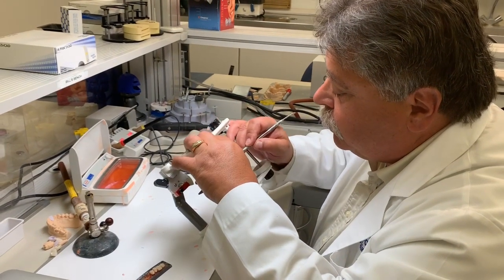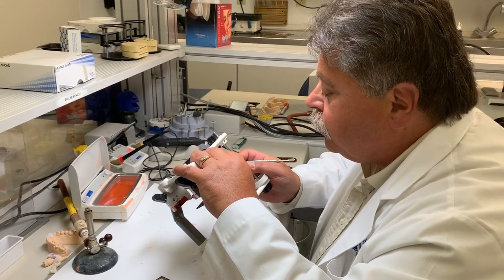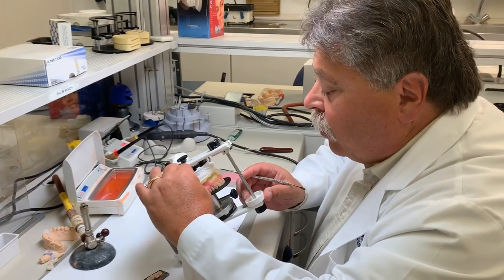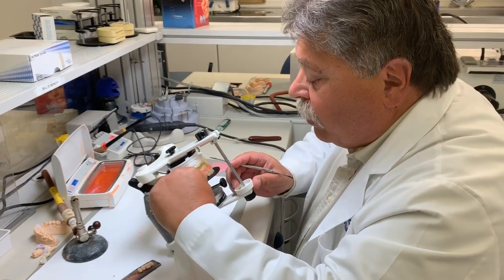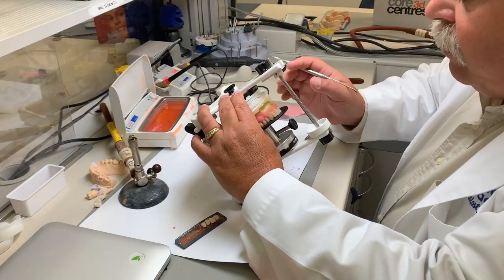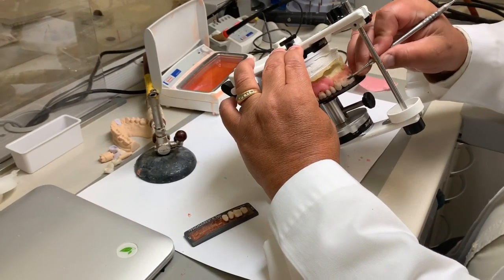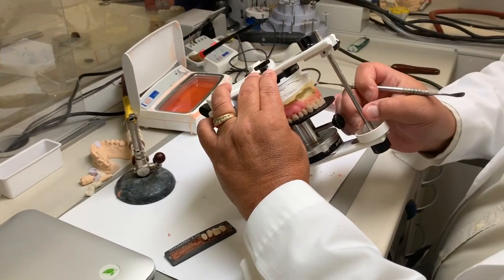Are the anterior teeth a little bit trickier, would you say, to place? No, not really. As long as with this guide we can keep everything all in line. And as you can see, it hasn't taken too long and we have almost the entire denture set at this point. That's incredible.